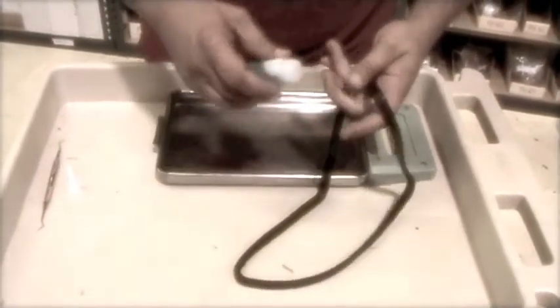The Statim sterilizer is a very popular piece of equipment in the dental office today. Staff can avoid many service calls by taking proper care of the cassette and making sure to correct all leaks before attempting to troubleshoot the unit if they get a cycle fault or error code. But many times, if there are no visible leaks, the cycle fault may be an indication of a problem in the unit's solenoid valve, which is the focus of this video.